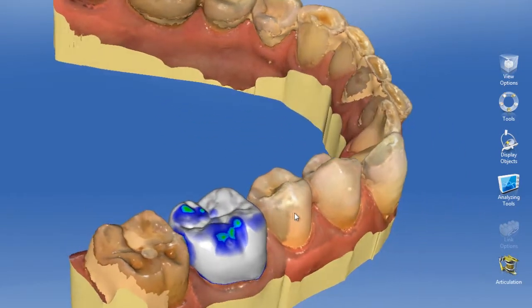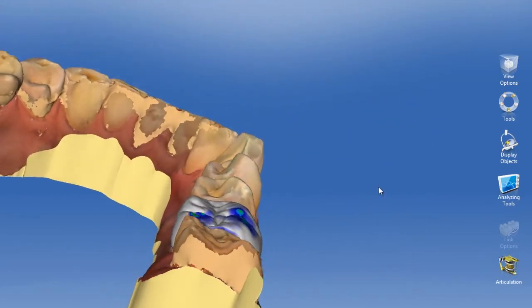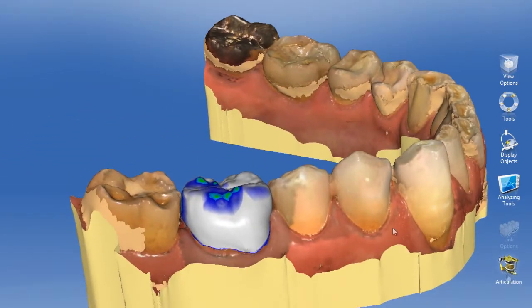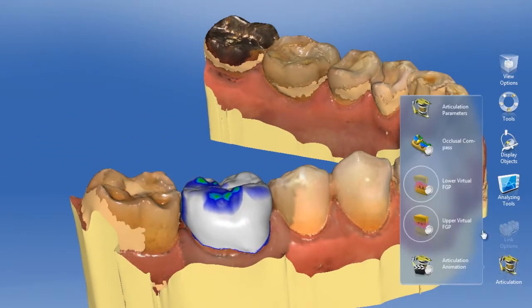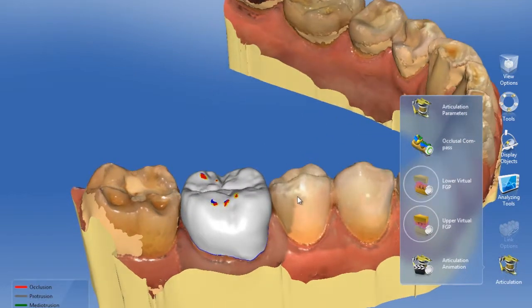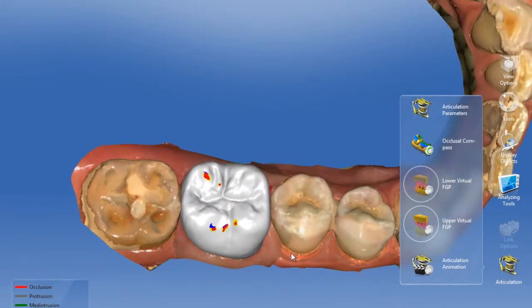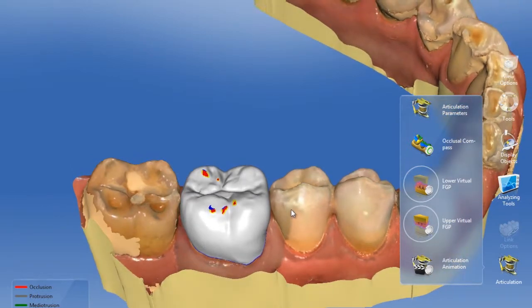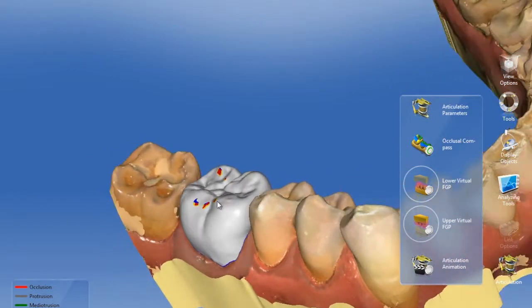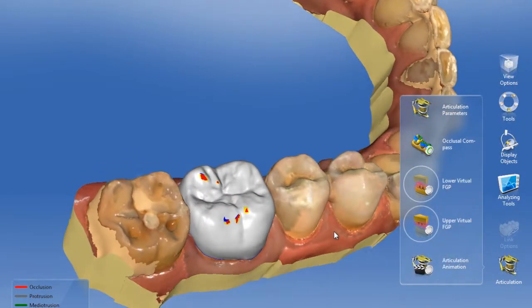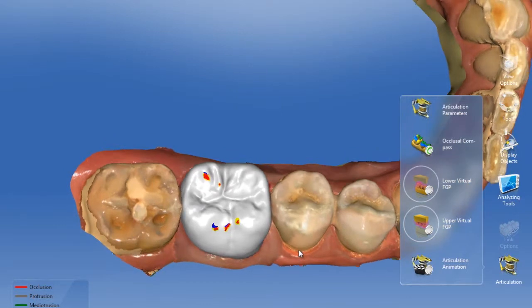Initially we're going to see the maximum intercuspation contacts, so we'll turn on the articulation. We have an occlusal compass mode where we can actually see the different interferences — they come in various colors so that those paths of the jaw can be analyzed and adjusted if needed. Typically on a ceramic restoration after it's been cemented, these are the ones that are the most troublesome to find.